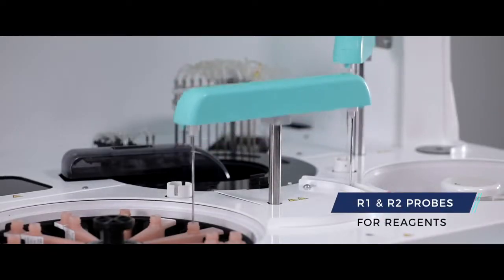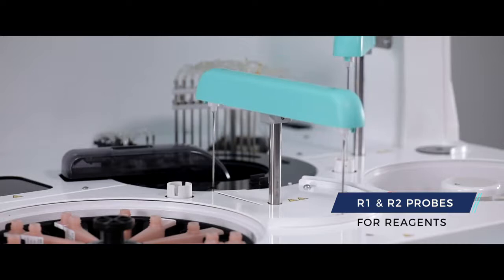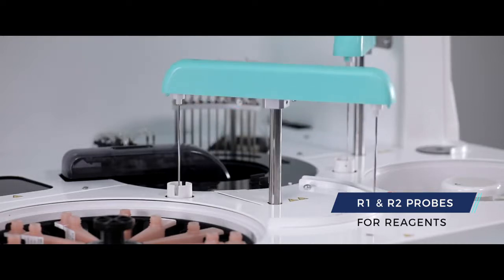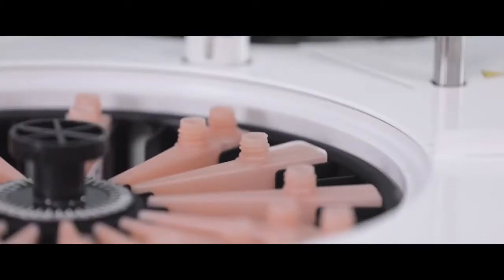TMS-30i is equipped with two separate sets of probes, R1 and R2 for reagents. This greatly reduces the chances of carryover that happen in other equipment due to the limitation in number of probes for each operation.